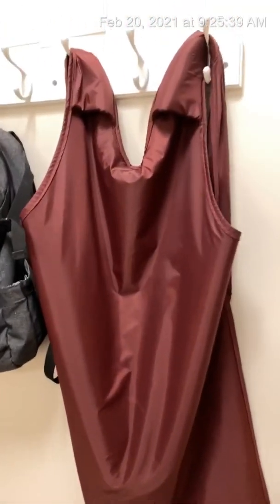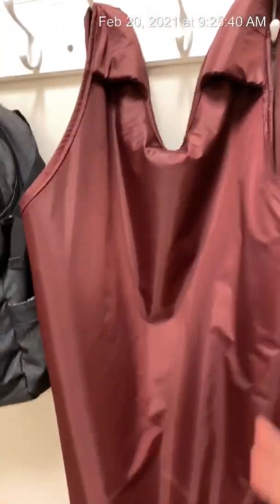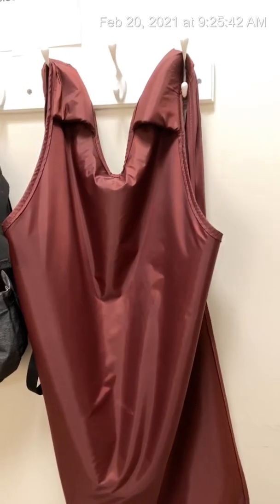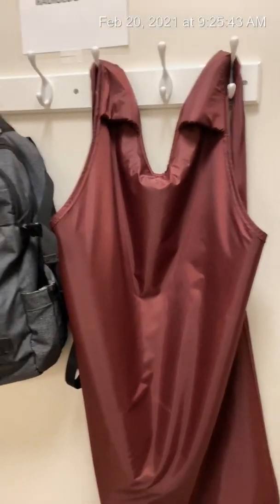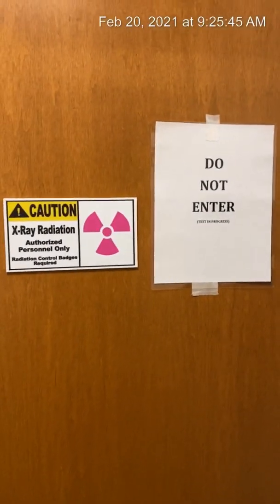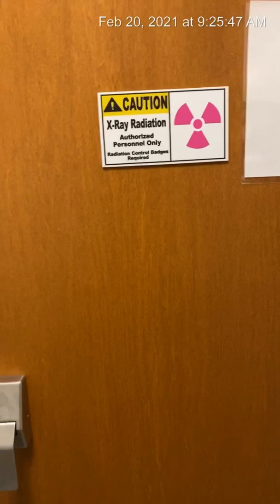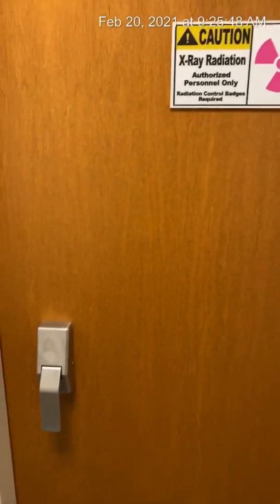So here's your lead. If you're in a medical field, you know this is your lead — that's your protection from radiation. So here it tells you not to enter because the CT is nothing but radiation, so you go in and it's kind of noisy in here.